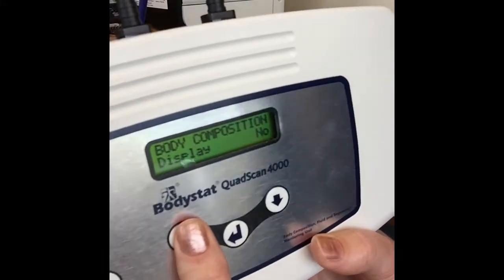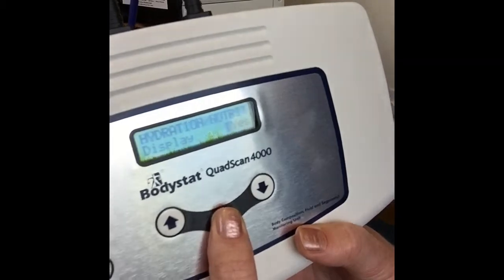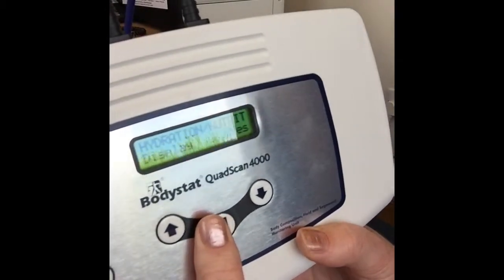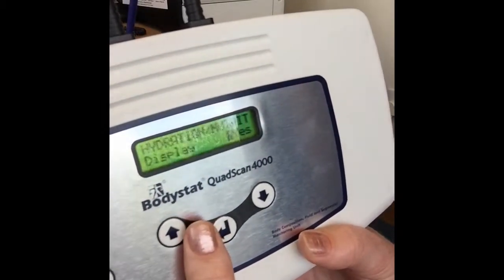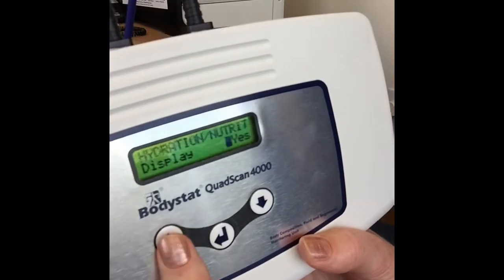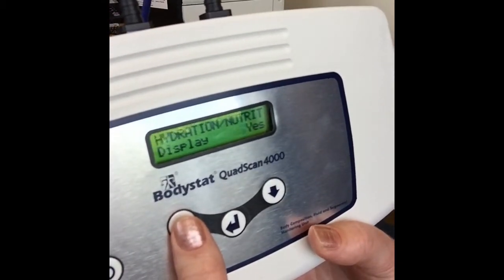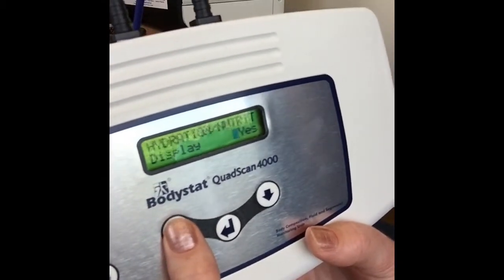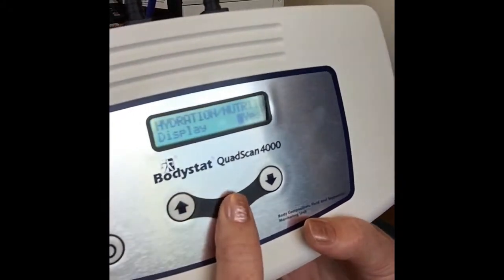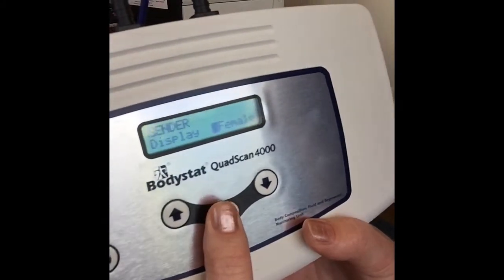For this instance I'll keep body composition on and press enter to scroll to the next screen, which will be the hydration. If you're not interested in any kind of hydration values you have the option of turning that off. I'll keep that on for now and press enter.